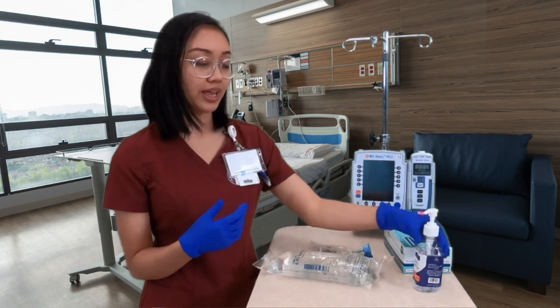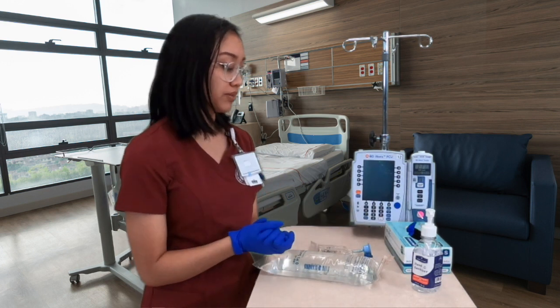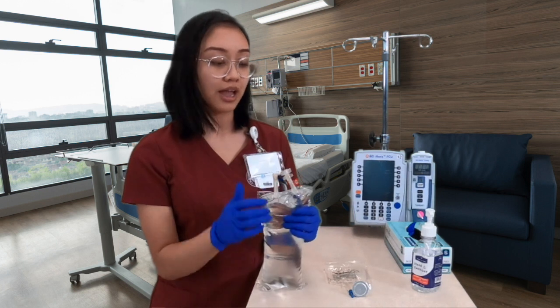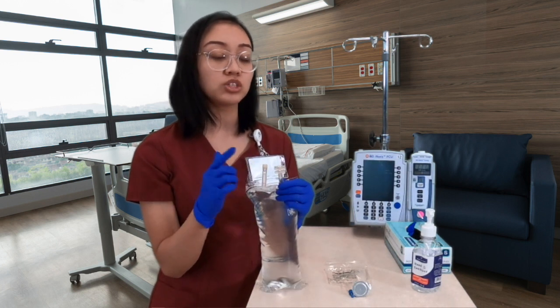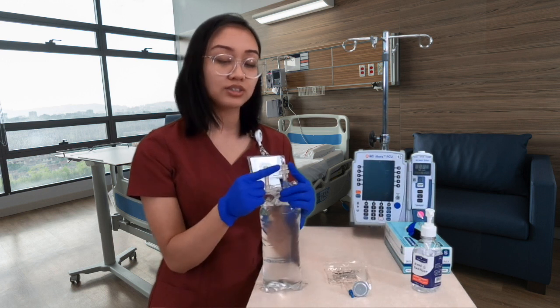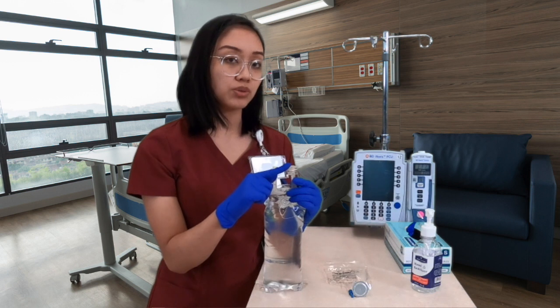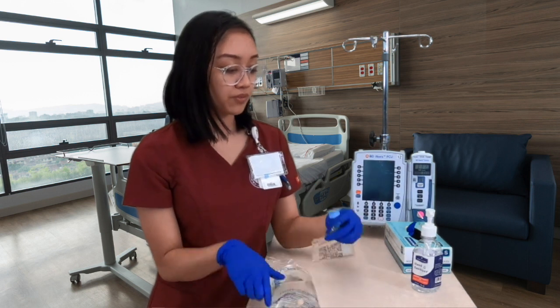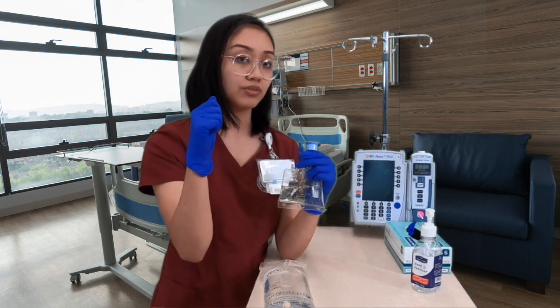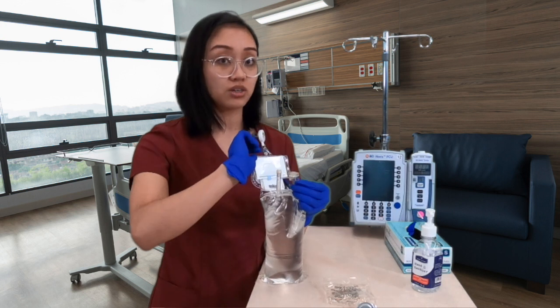I always do hand sanitizer, hand hygiene, and put on gloves before I do anything. Before I get started on anything, I want to show you guys how to remove these tabs, which you're going to be spiking in later. This one looks like little wings. These are twist offs. You would twist the top one. For these ones, you see a blue cap. For these ones, you just pull off. So again, blue pull off, wings twist off.